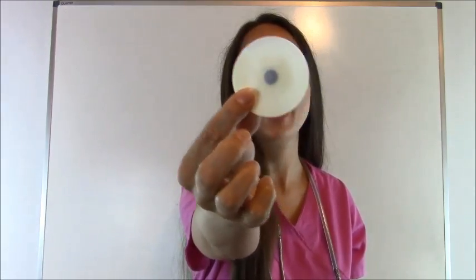Now before you get started, you need to get your supplies and what you need for supplies is some electrodes. You will need 10 of them and electrodes look like this and they have a backing on the back.